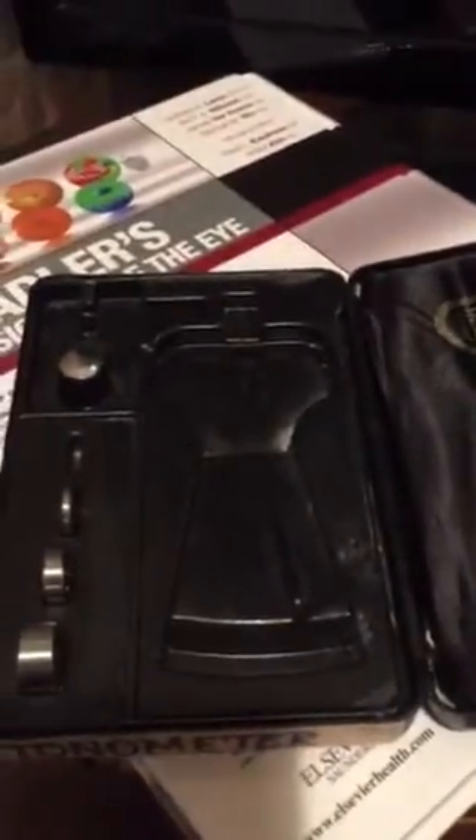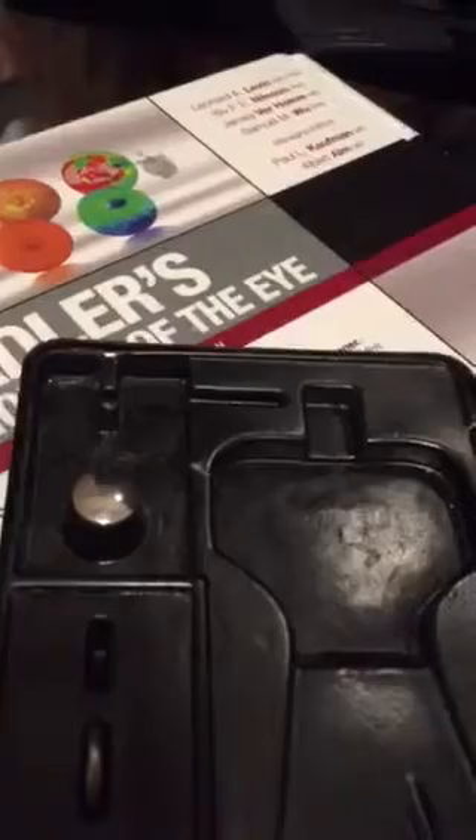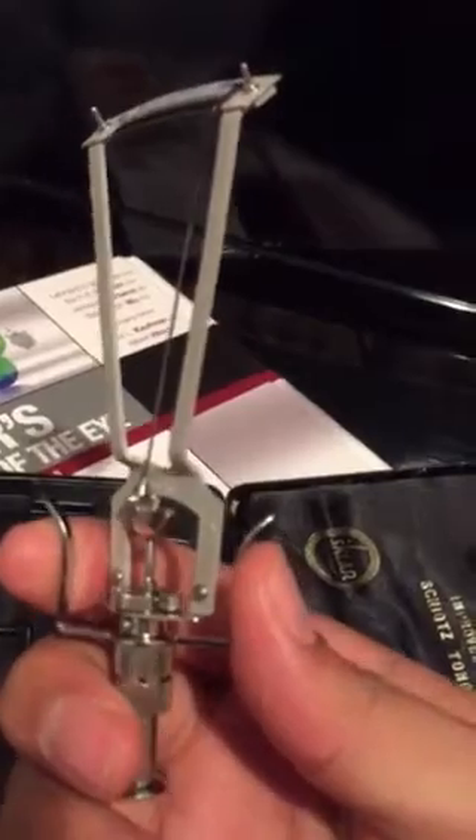Once the patient's eyes are anesthetized — and in this case we've got MISTI. Just kidding. We'll use this dummy metal object here. Hold the device between your index finger and thumb, as so.